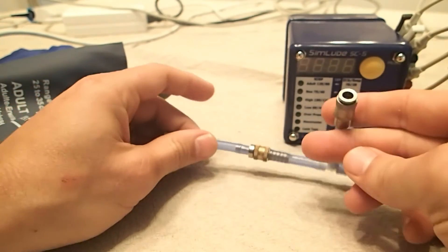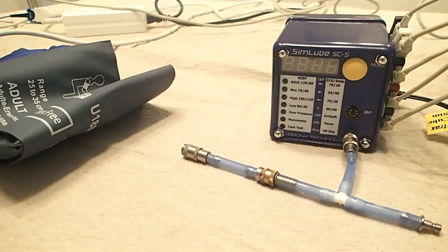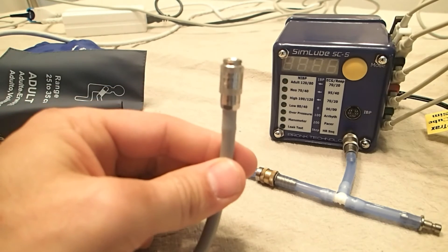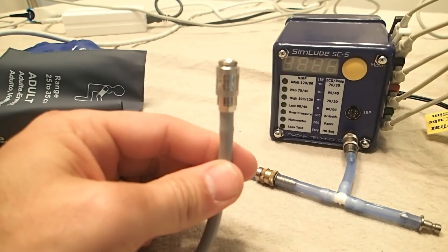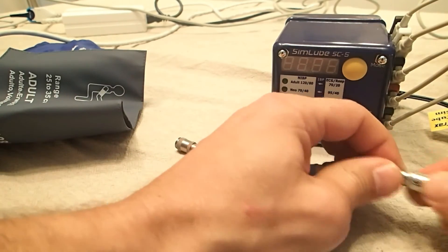We're going to connect this part to the tester. Next, we're going to take our cable that runs from the device, from the SpaceLabs Cube, and put it in this side.